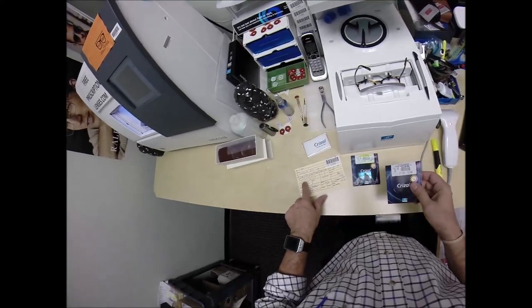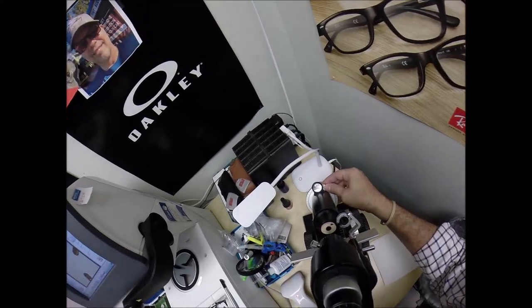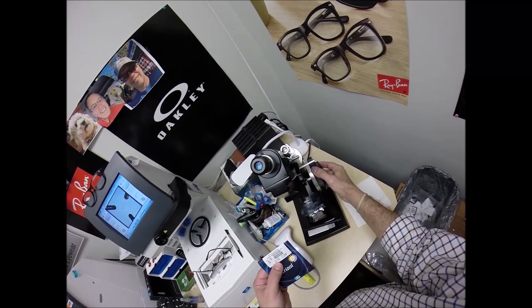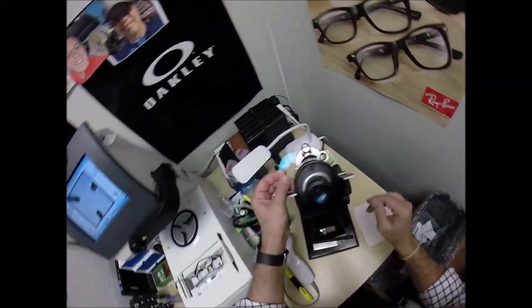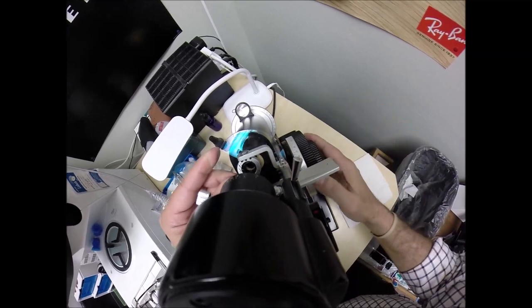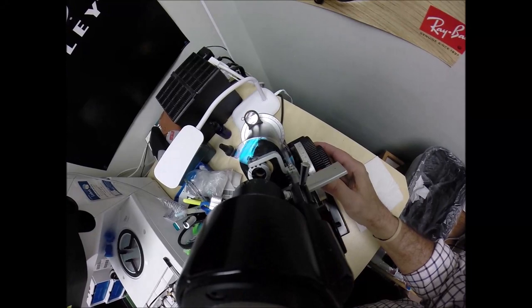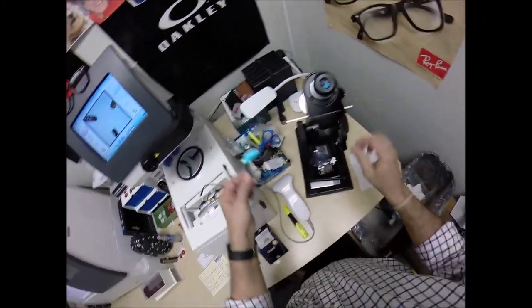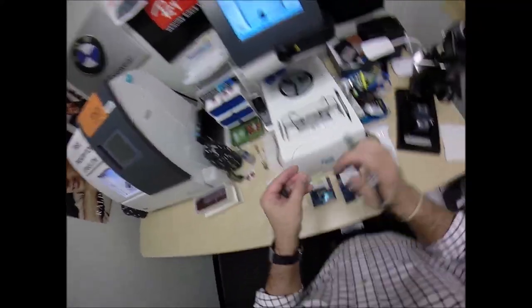The left lens is now minus 75, minus a quarter at 75. Put the power drum on minus 75. Take the lens out of its protective sleeve, take the laminate off the front, put it in. Rotate the lens until the spherical part of the prescription — the minus 75 — comes in first. We're going to check the minus a quarter. We end up at minus one, so that is perfect. We're going to put three dots on these lenses and label this one L. I always like to put it on the inside so it will be cut off at the nose.